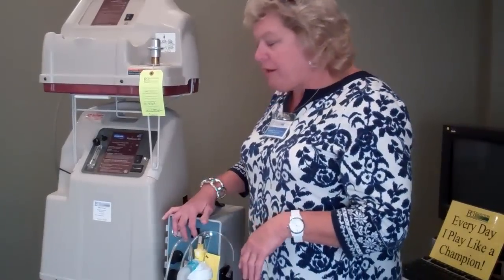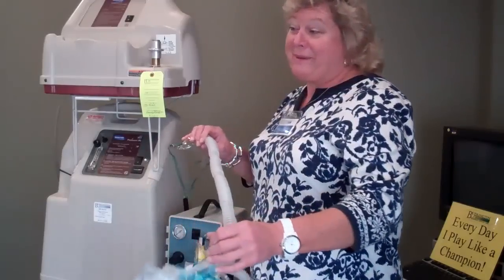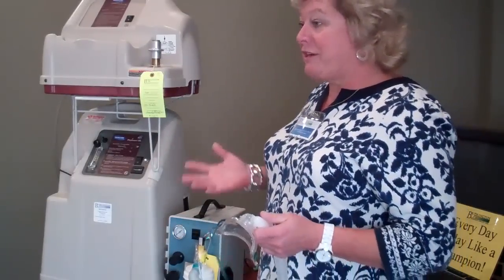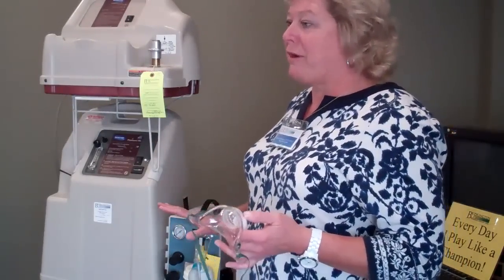One of the things you want to know about the compressor is it's very loud, and some of the patients don't like them because of that. If I turned it on and tried to talk over it, I wouldn't be able to — you'd have to scream over it. So I'm not going to turn it on right now.